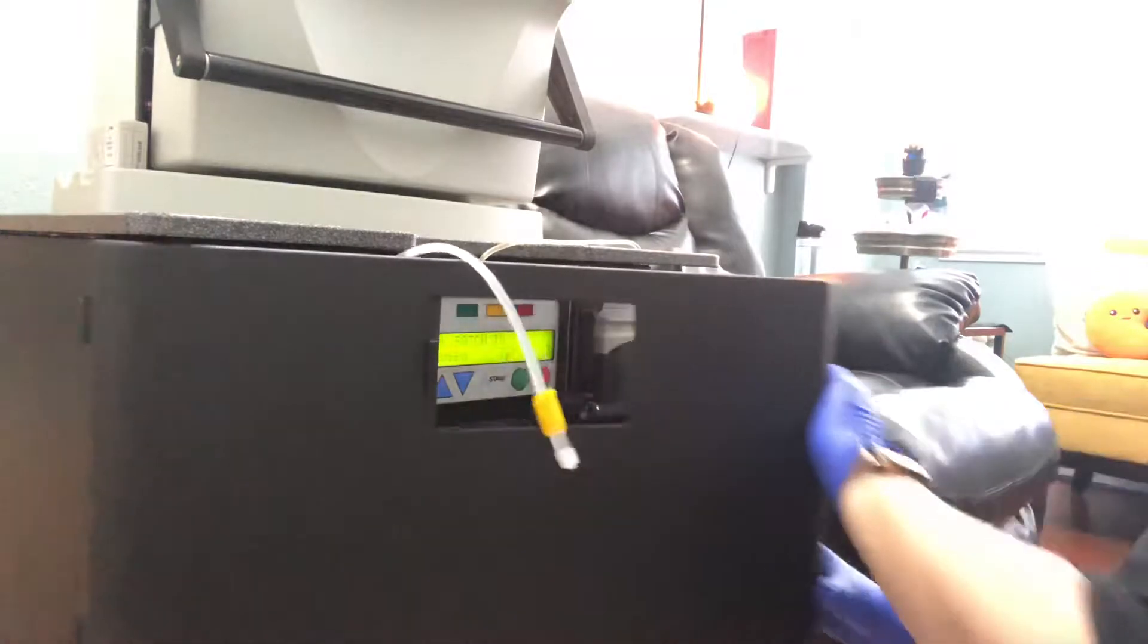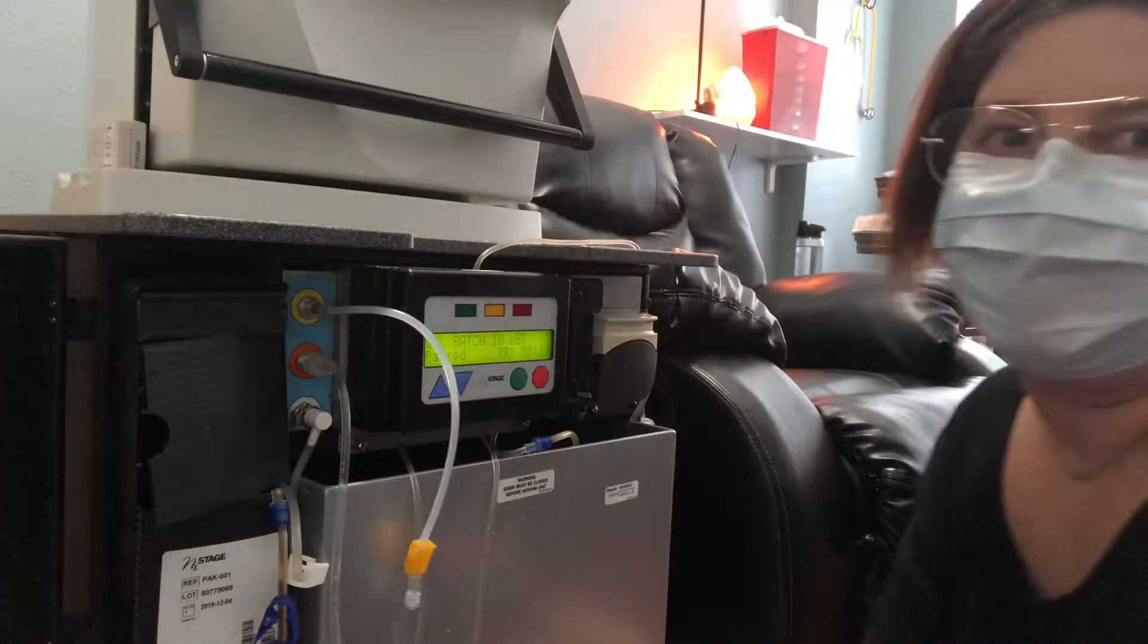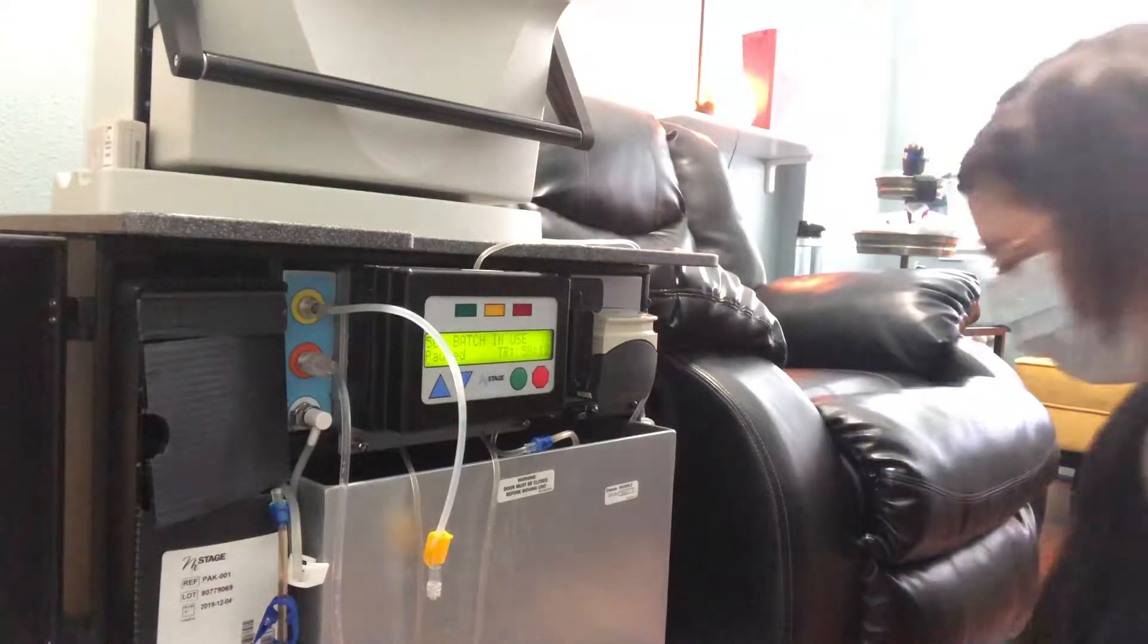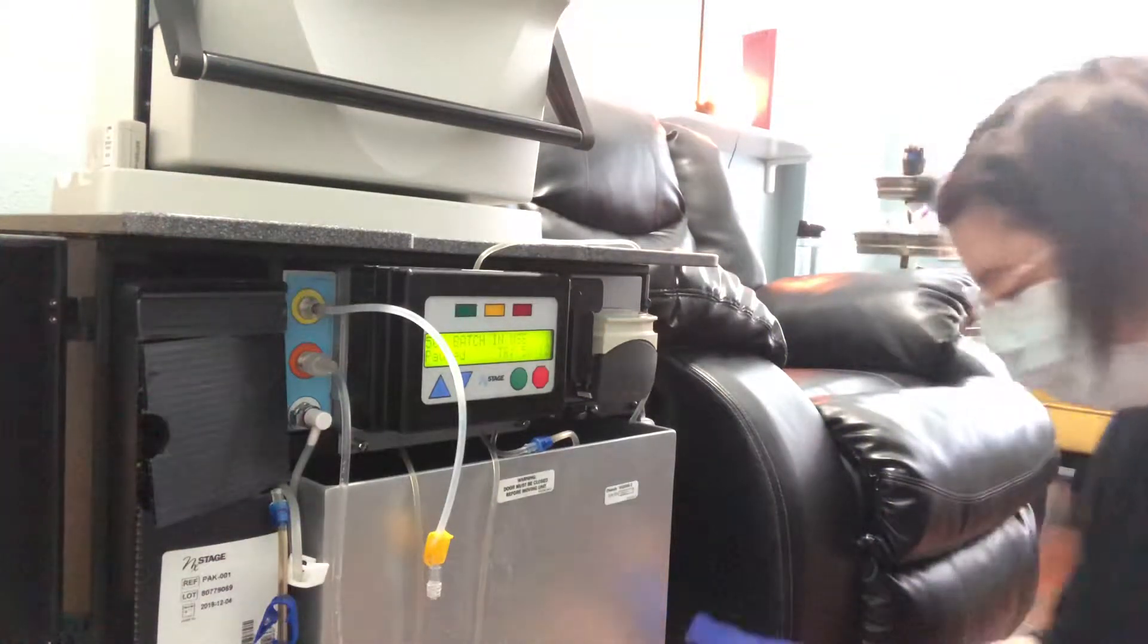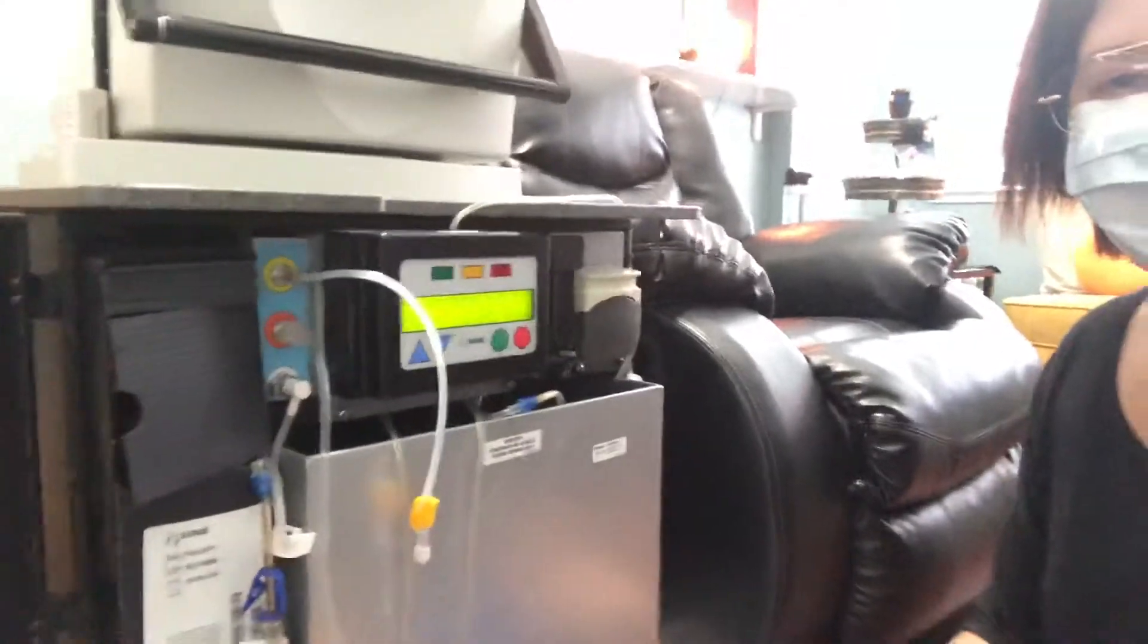I'm just going to open this up. For this test, you're going to want to use aseptic technique, meaning you're going to want to put gloves on and a mask. Also, I'm just going to read from the page here.